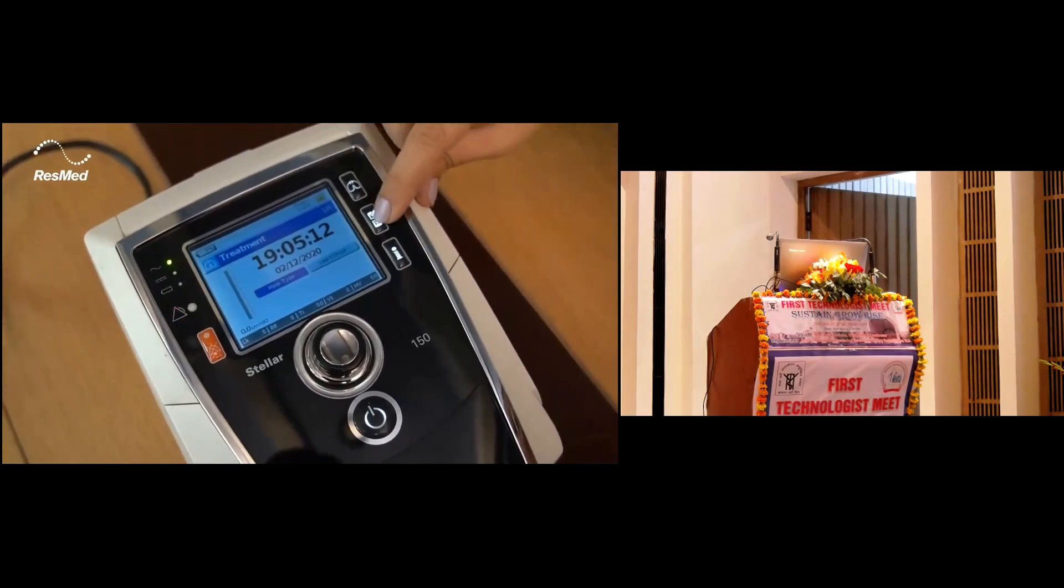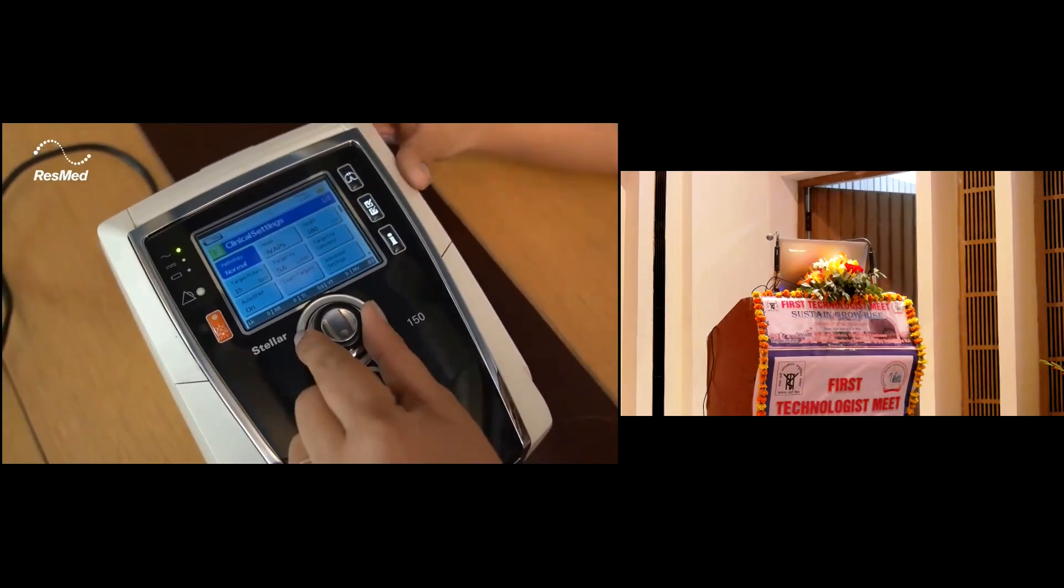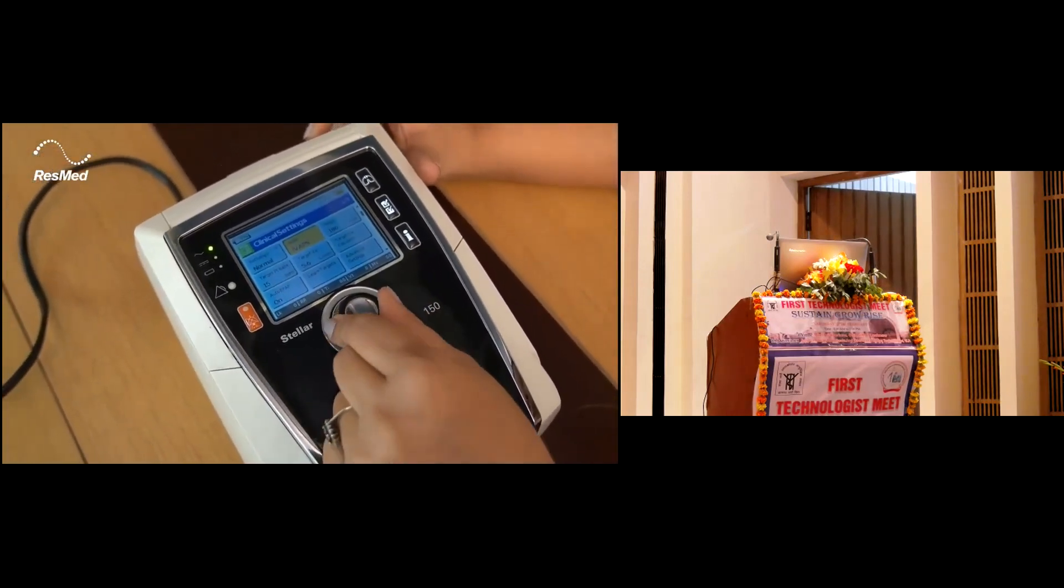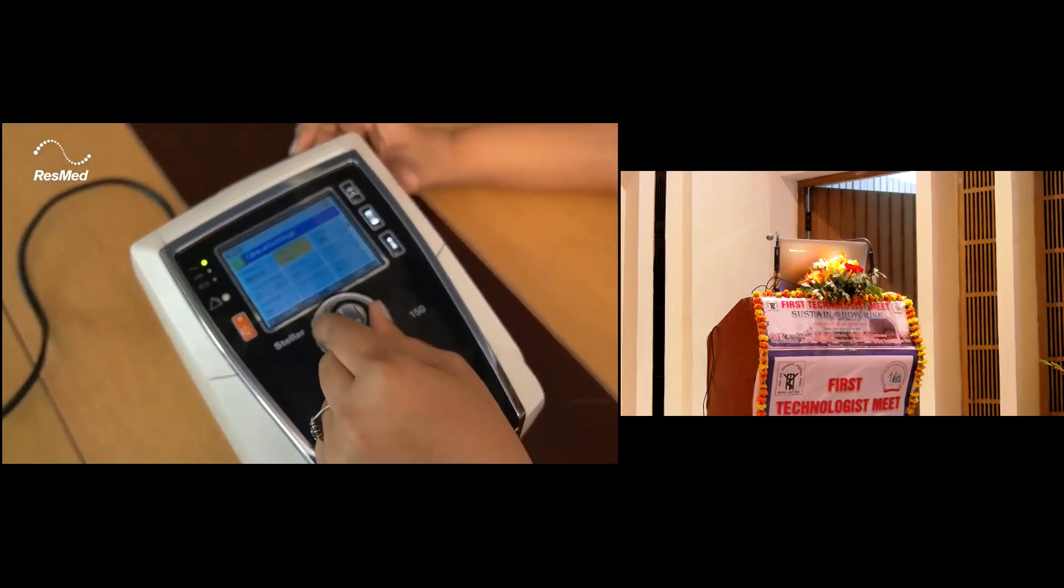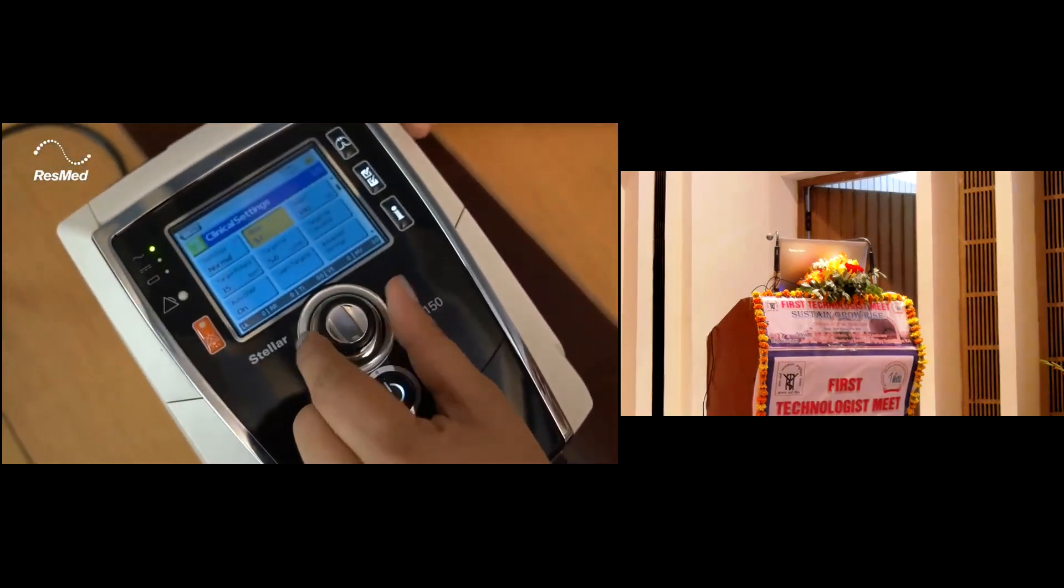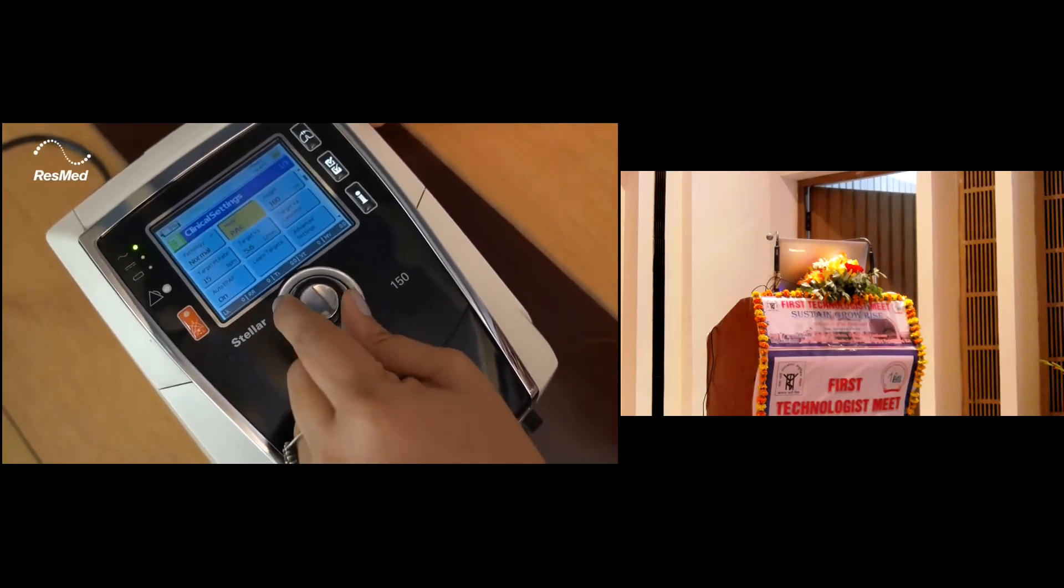If I have to change the settings for the patient, I click on the settings menu. Over here we can select which mode we want. All the NIV modes are present in this device: the S mode, CPAP mode, ST mode, T mode, iVAPS, and PAC mode.